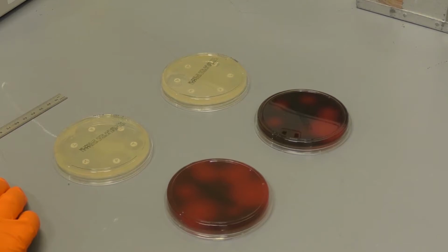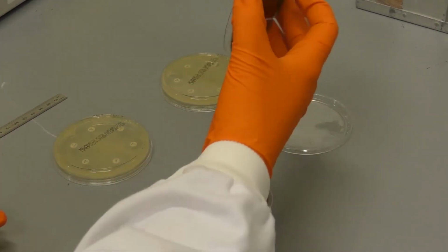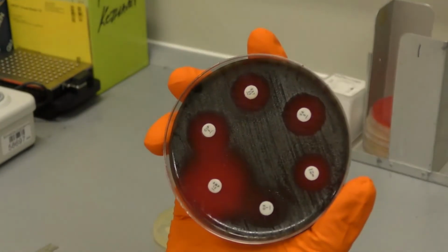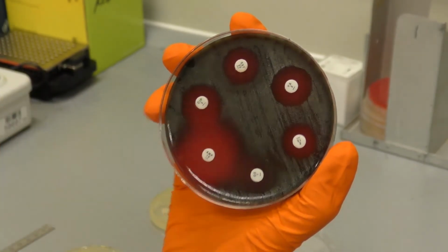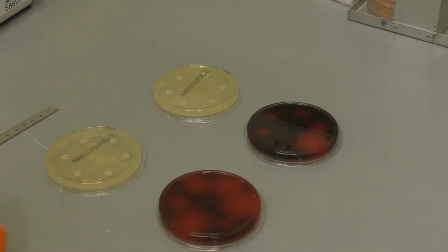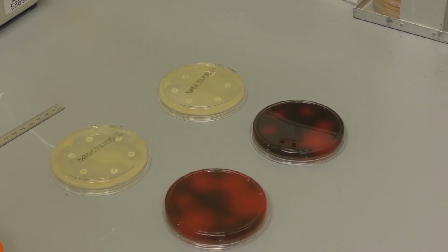Weak colonies growing within the zone of inhibition, i.e. intermediate or resistant colonies, should be subcultured, identified, and then the test repeated if necessary. Antagonists in the medium may result in faint zones up to the disc. Such zones should be ignored, and the zone of inhibition should be measured to the point of clear demarcation where there is an edge of clear growth.